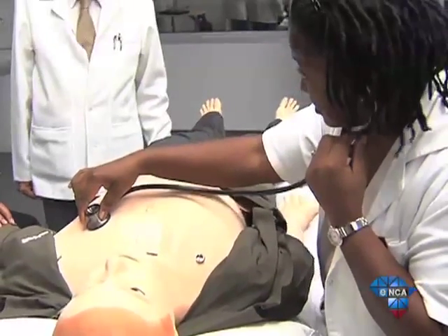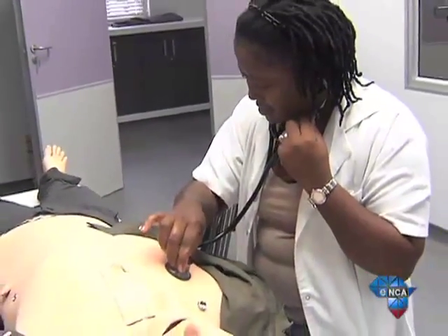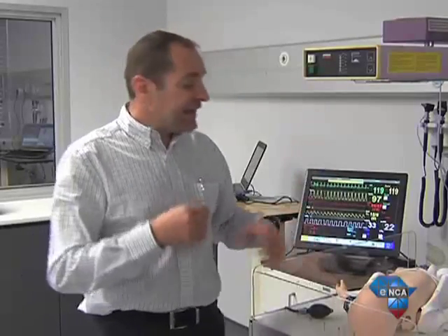And while the patient simulators may not be the most attractive patients, they can be used to simulate virtually any medical condition. With a high fidelity simulation, you can recreate a physiological setup, so you can see what's going on on the monitor. And the simulators can react the way a real patient would react.